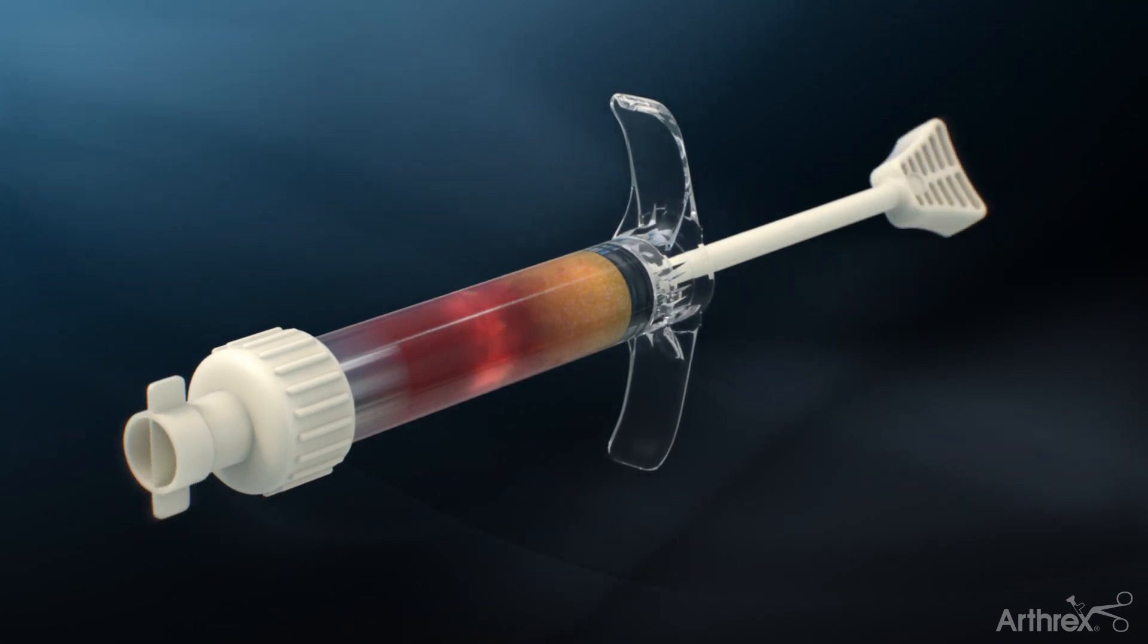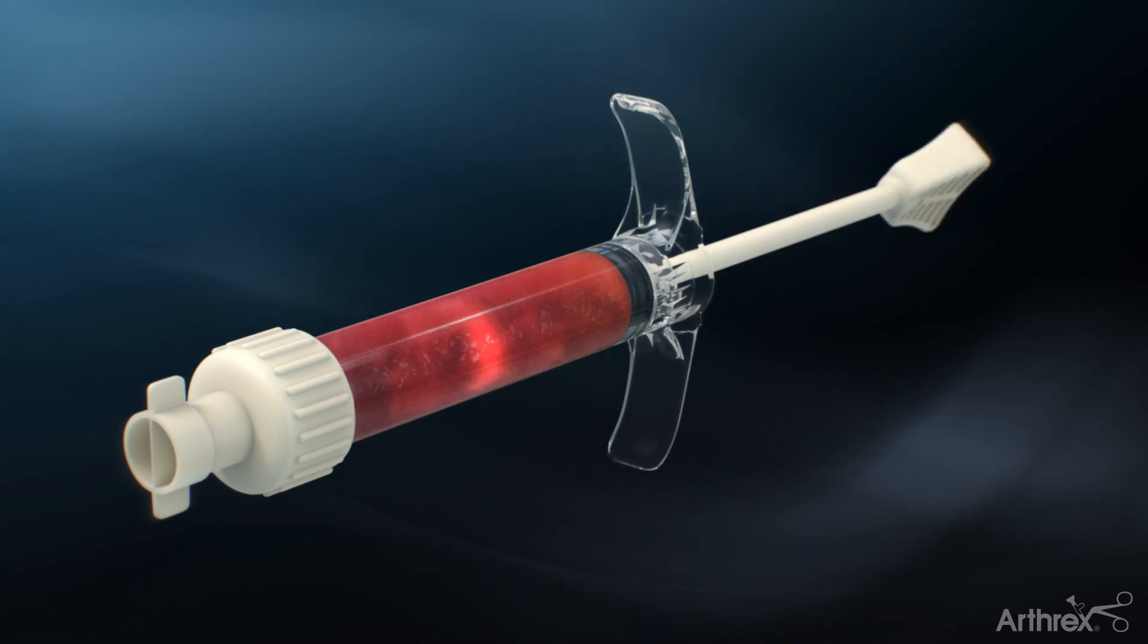Unsnap the pushrod from the mixing element. Push and pull the mixing element back and forth until thoroughly mixed.